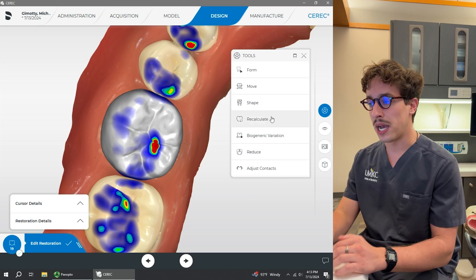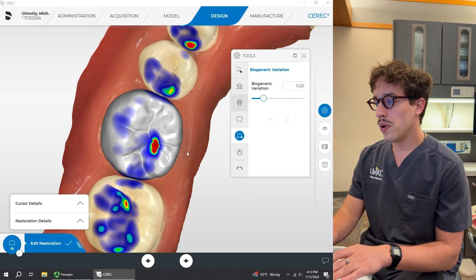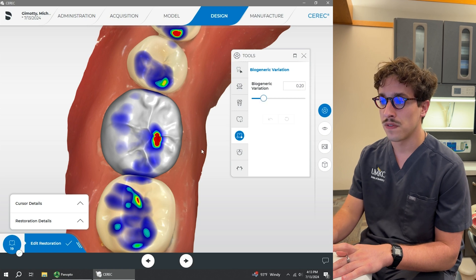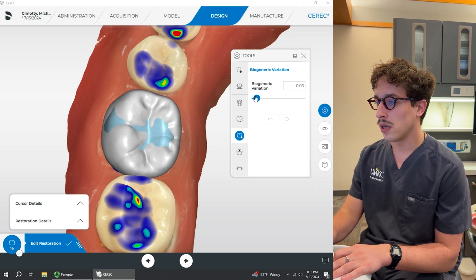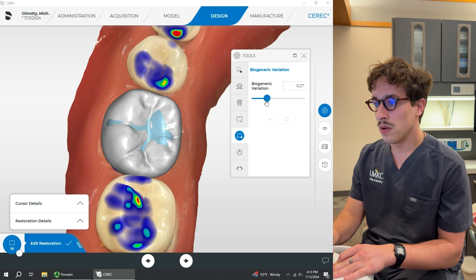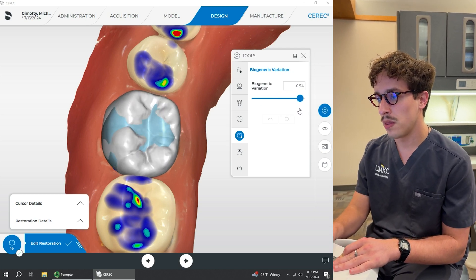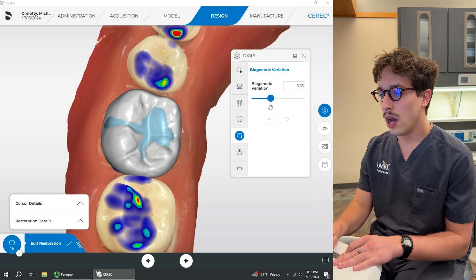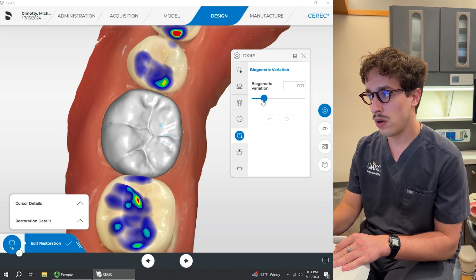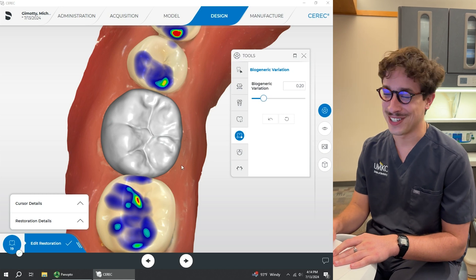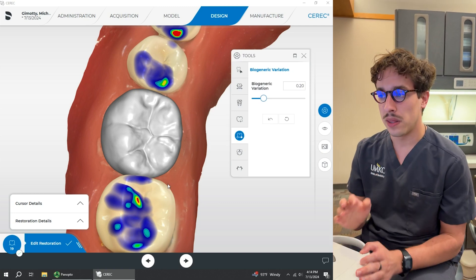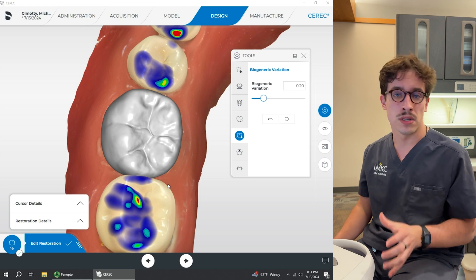What I'm going to do first is go to the biogeneric variation tool. This is a slider — a spectrum of different options for the teeth with different amounts of occlusal anatomy. I'm going to slide through and you can see this lighter blue portion — that is the minimal thickness where it will warn you. What I'd like is something with anatomy that I like, but also with minimal thickness that I like. This preparation is really great looking, but it is a little bit under-reduced.